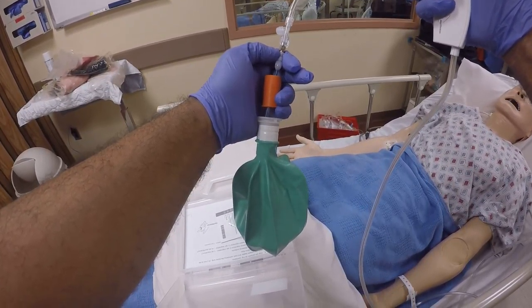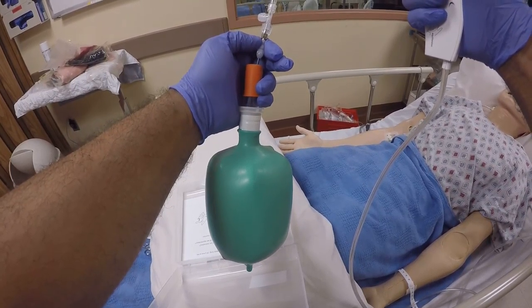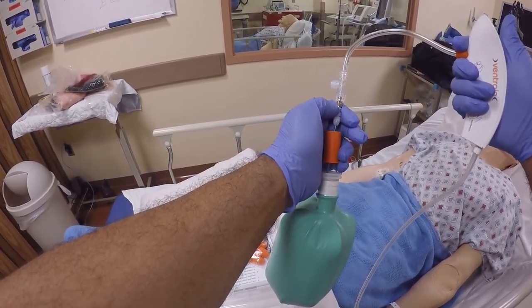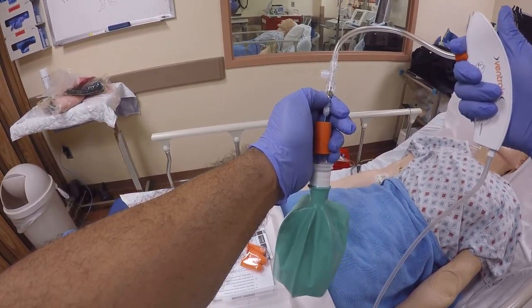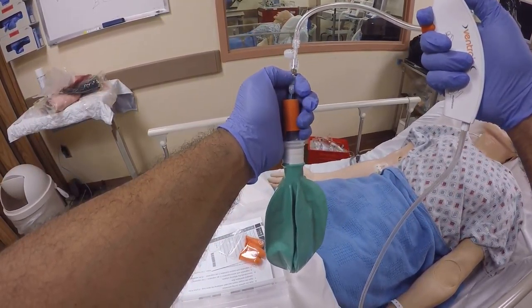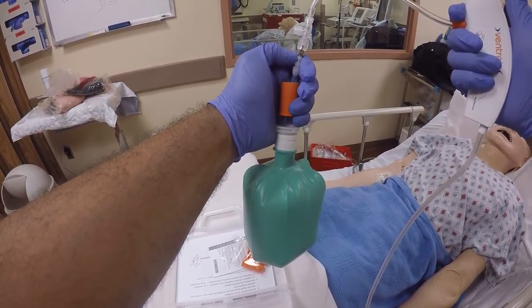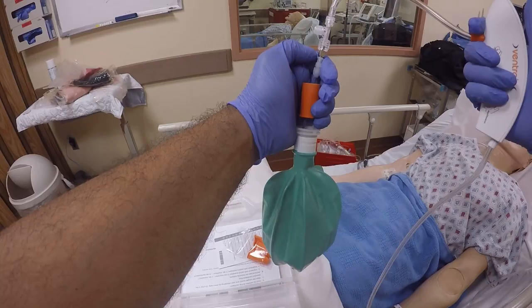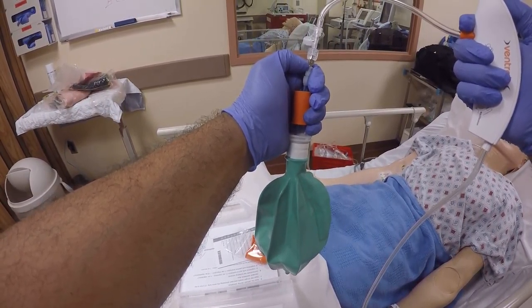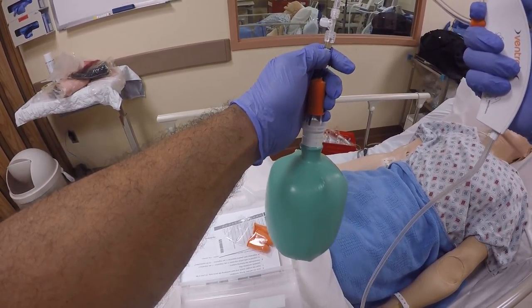When I saw this, I thought it would be perfect for pediatric airways, but it hasn't been designed for pediatric airways — not yet. I see the applicable chances of using this. Applications suggest successful use for needle crikes in patients who, based on their age, are contraindicated for surgical crikes but surgically indicated for tracheostomies. This will buy you time with oxygenation and ventilation.